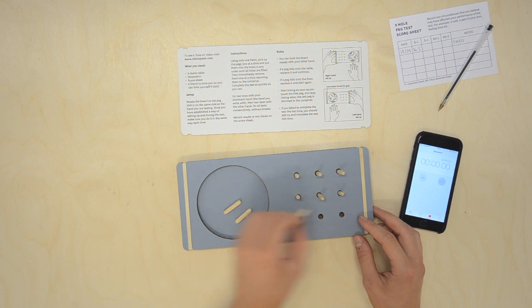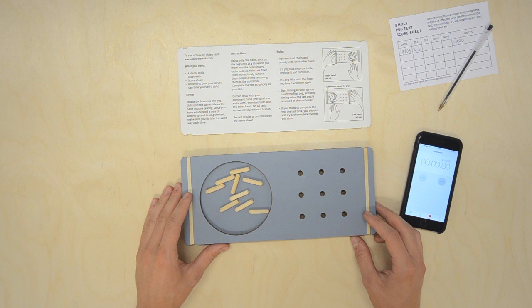If you fail to complete the test for any reason, you should still try and complete the test next time. It's important that once you have established a way of setting up and timing the test, that you do it in the same way each time.